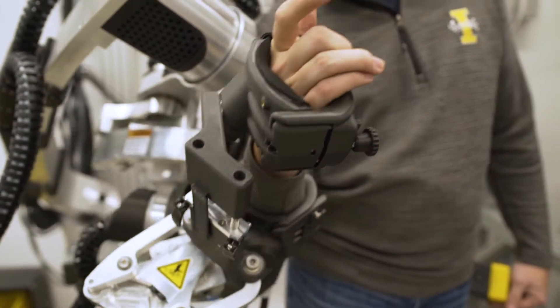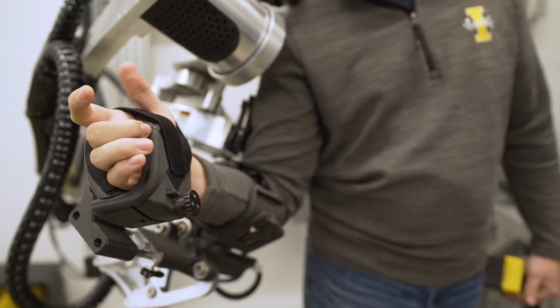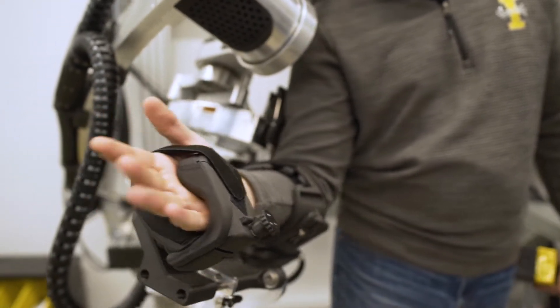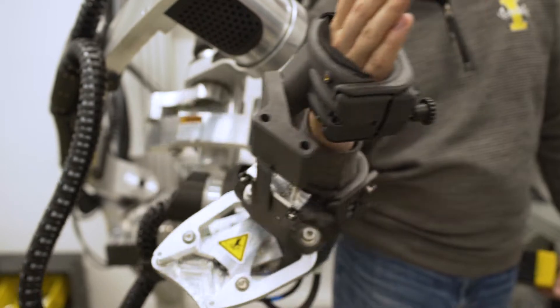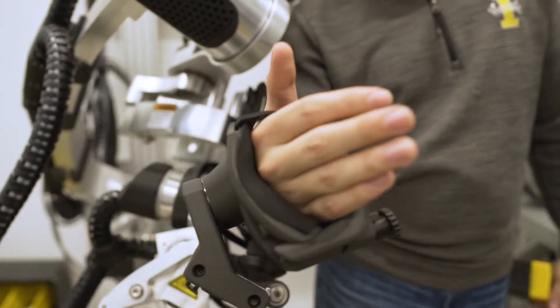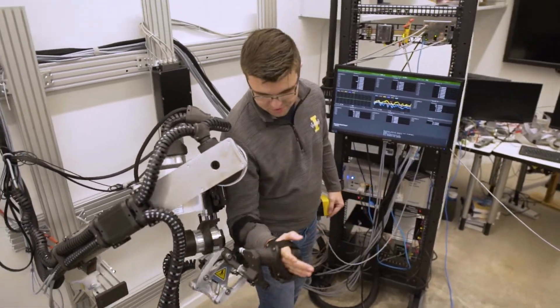The last five years I've been working here at U of I to develop Blue Sabino, which is a robot that will allow us to do assessment and evaluation of stroke survivors and people with other neurological impairments.